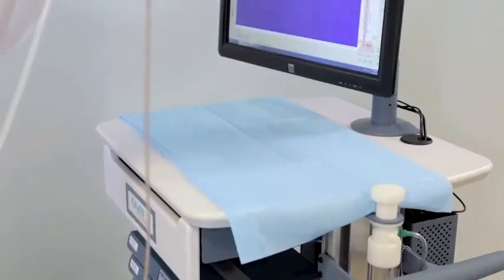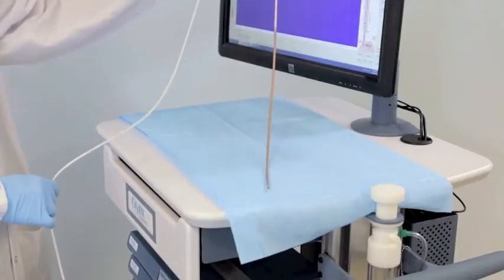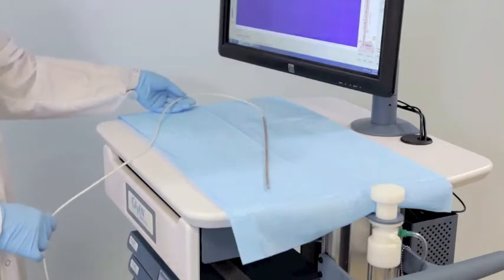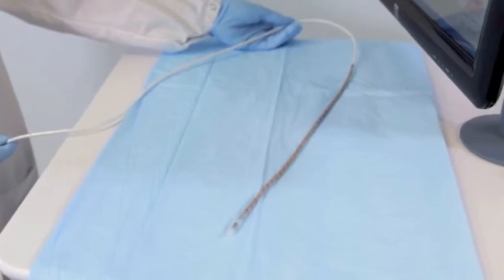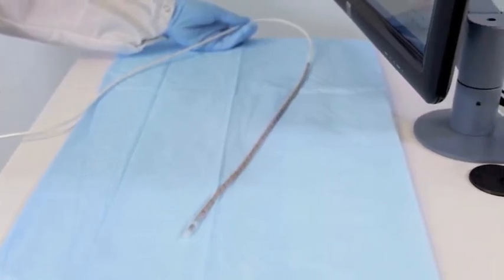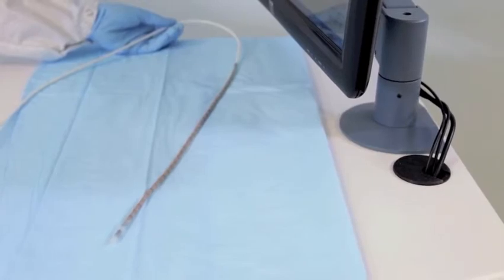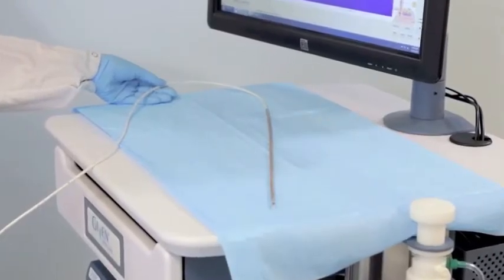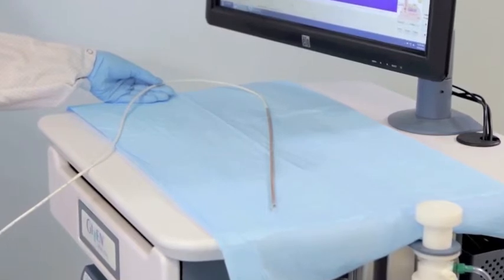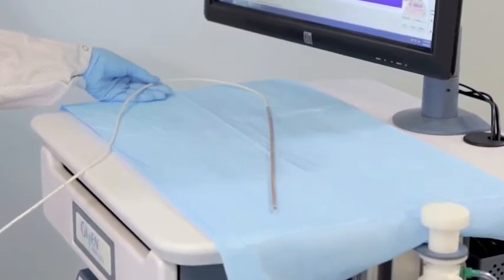Place the catheter on a designated clean area utilizing a clean towel or hospital pad. Do not insert the catheter into the calibration chamber or lay on the surface of the ManoScan unit until it has undergone high level disinfection. Discard the ManoShield and send the catheter for high level disinfection per the instructions for use.